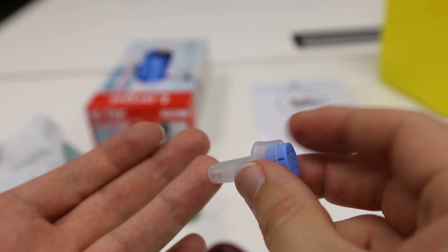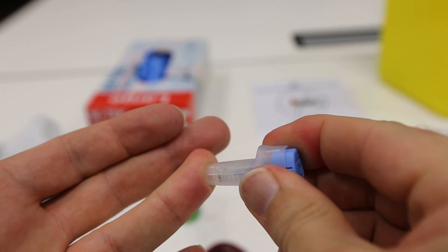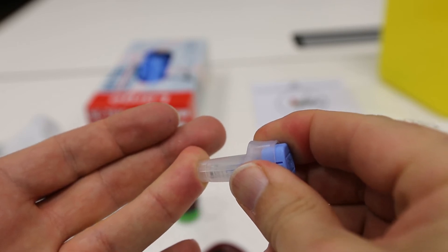Just remember to press the lancet gently against your finger. There is no need to press forcefully, and if you do, the procedure tends to hurt more.